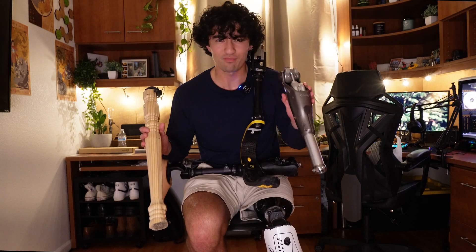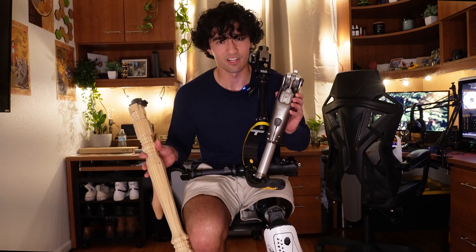How do prosthetics actually work? I've had an endless amount of prosthetics in the past six years, each of them doing their own different thing, their own functionalities, and all at different price points. And yes, before you ask, it did cost me a leg.